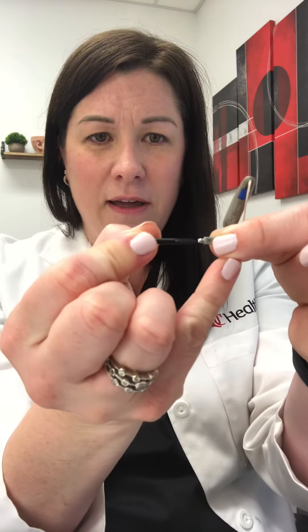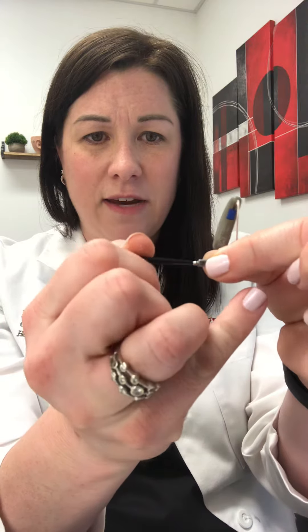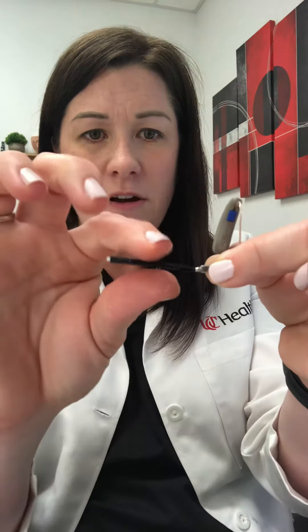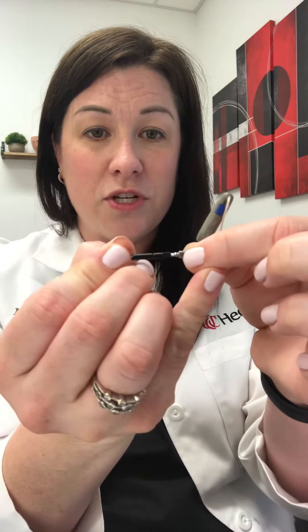What you're going to do is take the end of the earpiece and the screw end of the stick and kind of twist it down in there. That should stay in there, and then it pops right out. Flip the stick over and just push the stick straight down into there, and that leaves the new white piece in place.